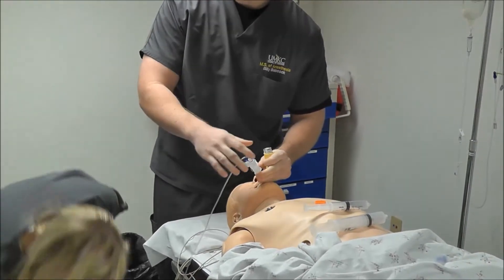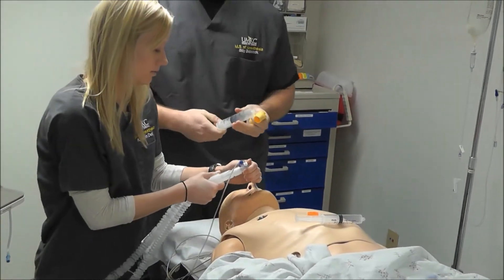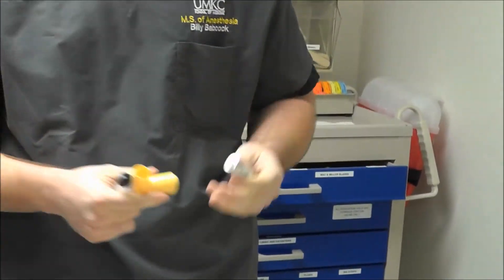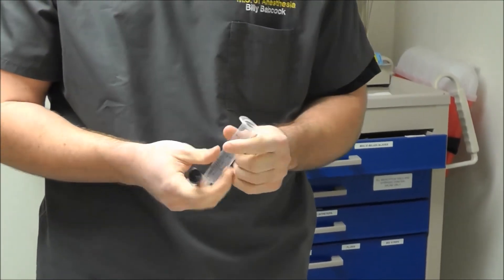So we're going to want to use a syringe — we'll need a 60cc syringe. If we look at a 20cc syringe and remove the canister and try to put it in, it's too small, so we're going to need a bigger one.